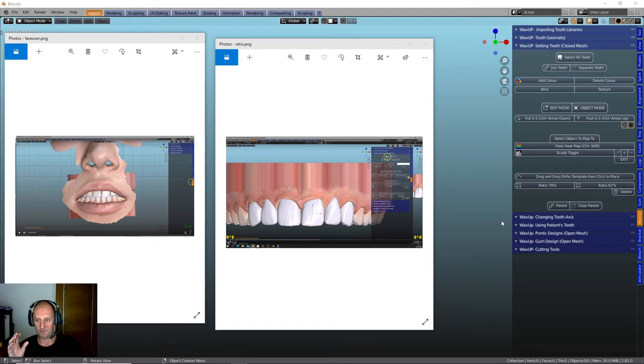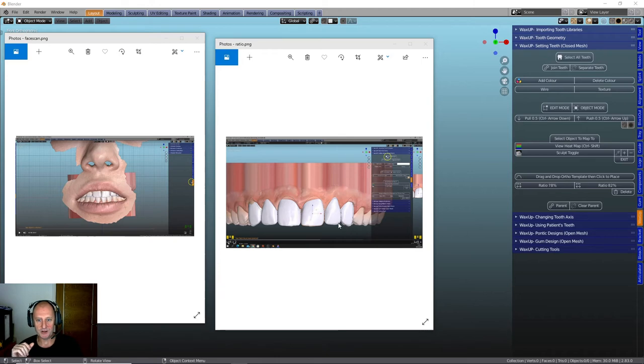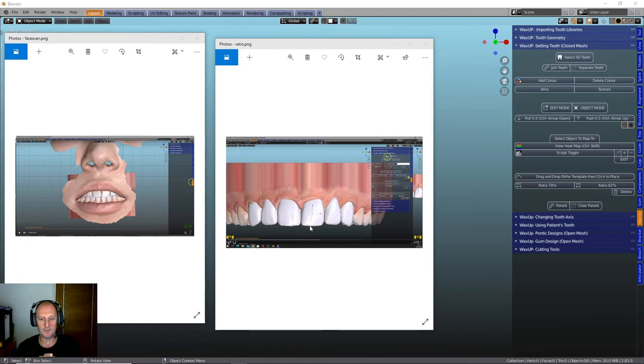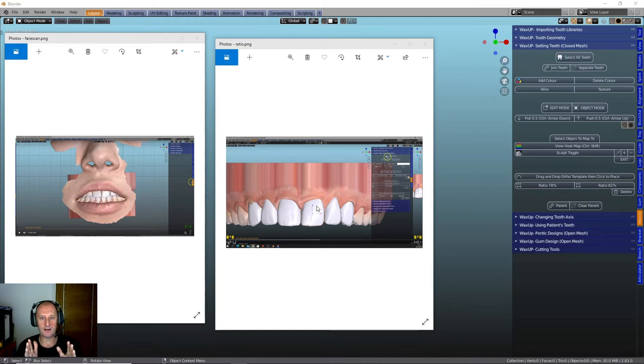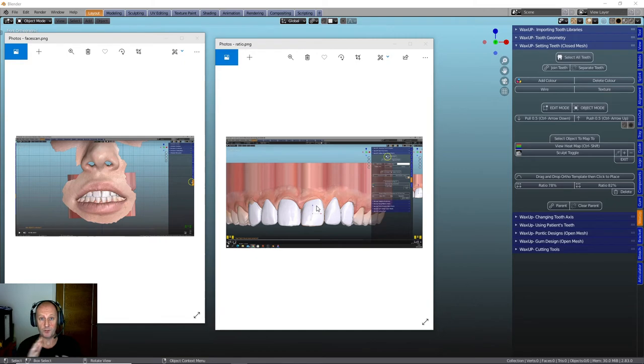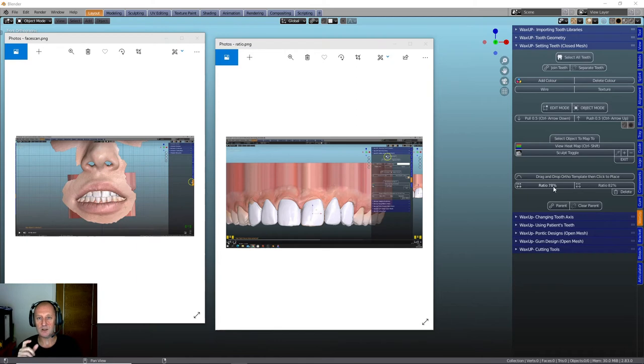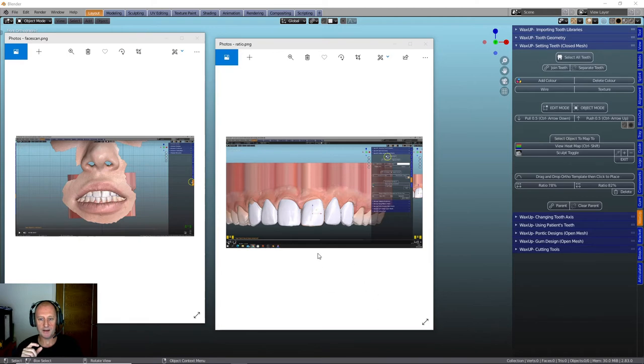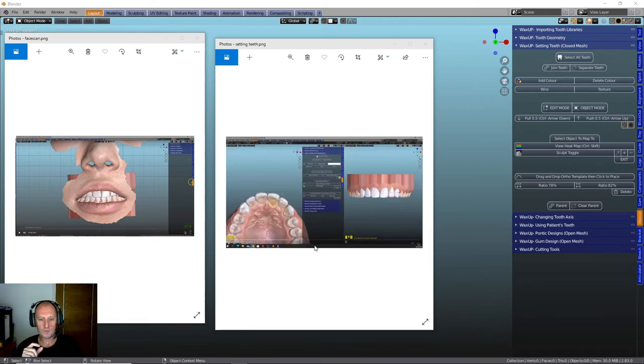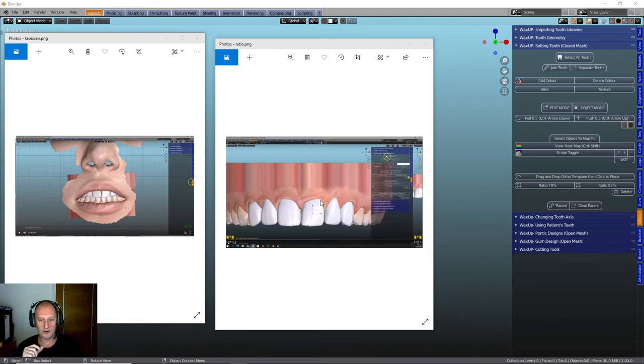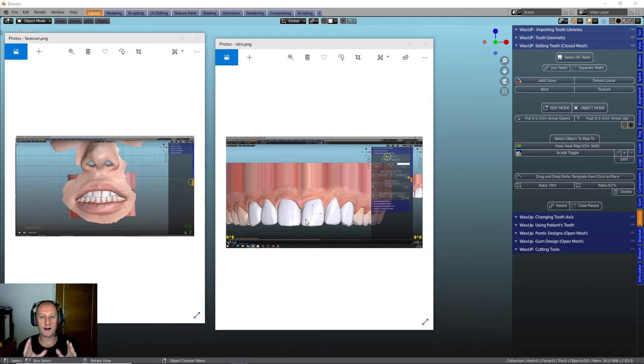One of them is this ratio, the golden proportion ratio. As you can see here, you bring into the environment like a template where we can see the actual golden proportions and we can then fit the teeth within that. Now, you can scale that. You can make it bigger, but it doesn't change the proportion between the central, the lateral, and the canine. We've got a 78% ratio and we've got an 82% ratio. So as you can see from this picture here, hopefully you can see, there you can see the outline of the proportion. You can move that around, get it in the right place and then put the teeth in and then move the teeth to fit that golden ratio.